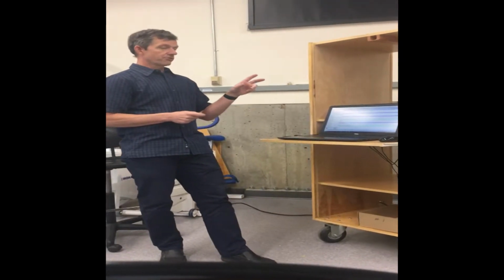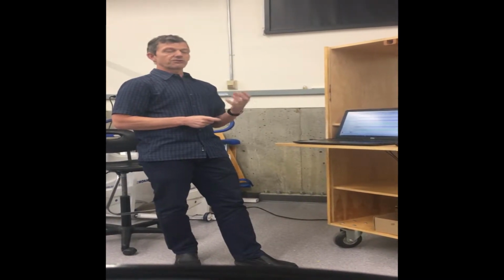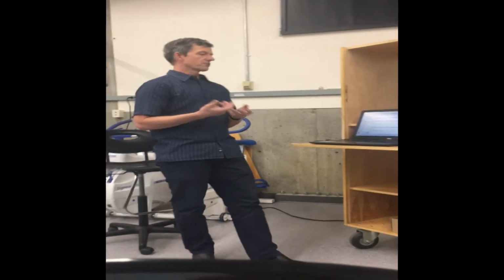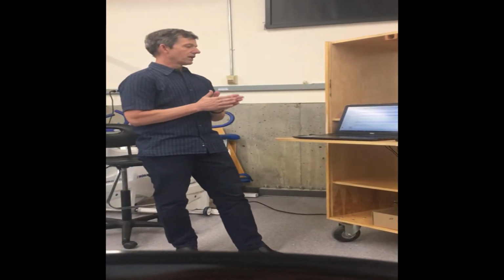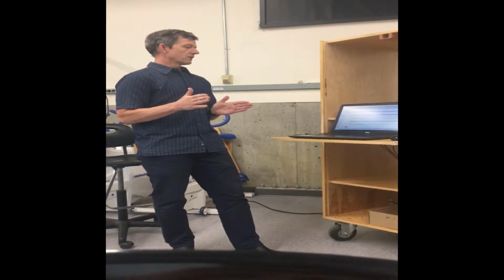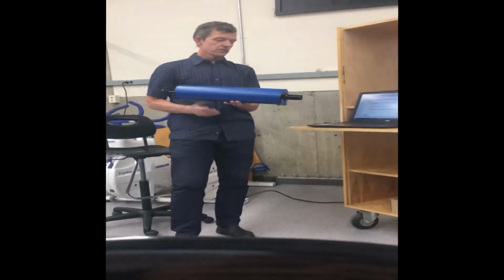It's the same flow head that we used when we were doing pulmonary testing, but it's a larger flow head that's designed for VO2 max testing. You can put up to at least 300 liters per minute through that. So to calibrate that, the first thing we do is when we run the program, we allow no air to go through it for 10 seconds. And then what we can do is we can take a calibration syringe. This is a 3-liter calibration syringe.